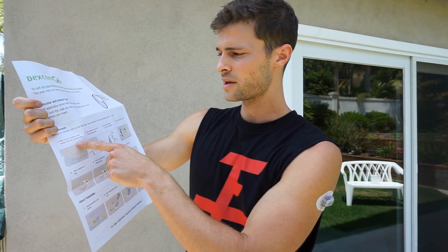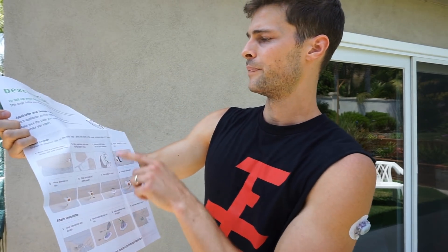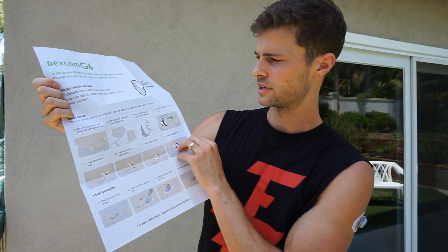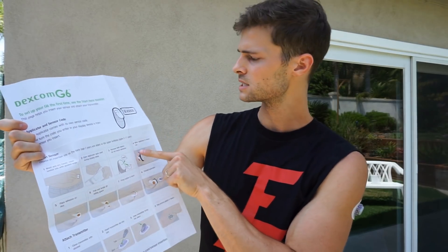So you can go through — we will be following this. Wash hands — I already did. Clean sensor site and wash it with an alcohol wipe. These are not included with Dexcom; you have to get these on your own. I choose BD alcohol swabs — they are super easy, they are cheap and they work great. They are going to open the applicator pack during display setup, remove both labels, do not touch the adhesive — we don't want it to lose its stickiness. Move applicator to sensor site, wherever you choose to put it. It is supposed to be on your stomach, but I am a bit lean so mine is going to go on my upper arm — it is where it reads best for me. People go all over: legs, arms, back, stomach — I have seen forearms, everywhere. But do what your doctor says — doctors know best. Doctors approve me for the arm.